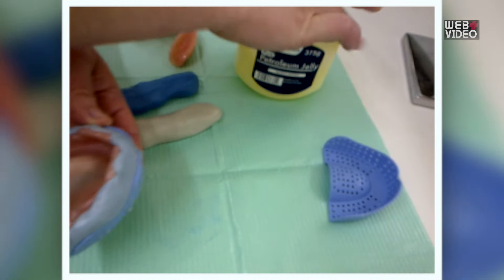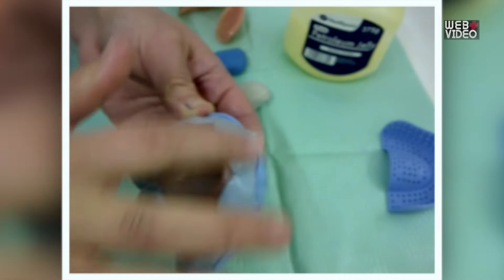Leave it to set. Step 2: Once the mixture hardens, rub Vaseline over the edges of the putty.